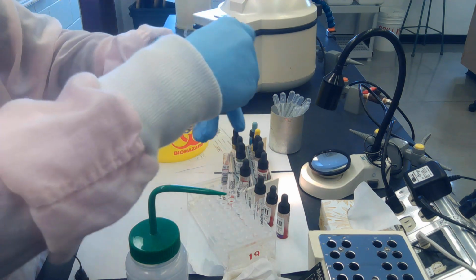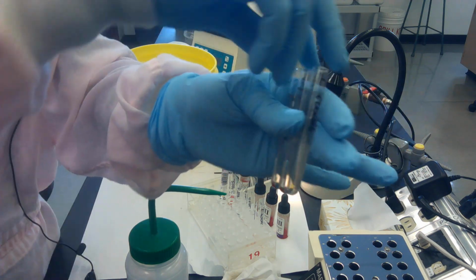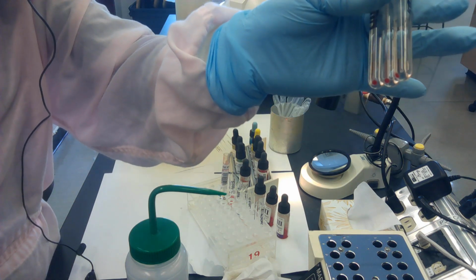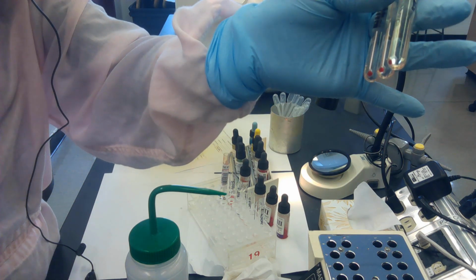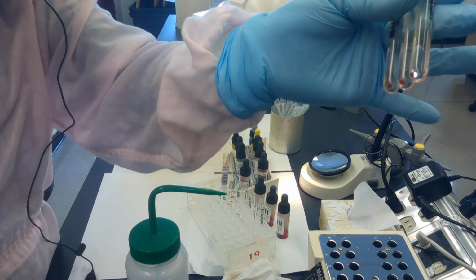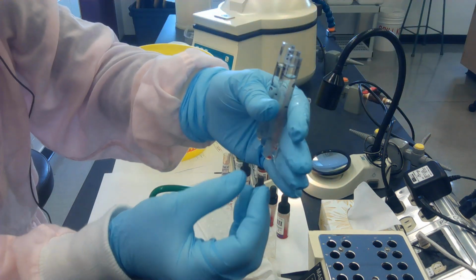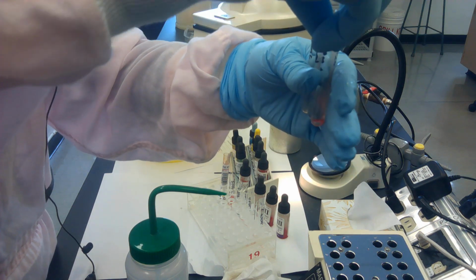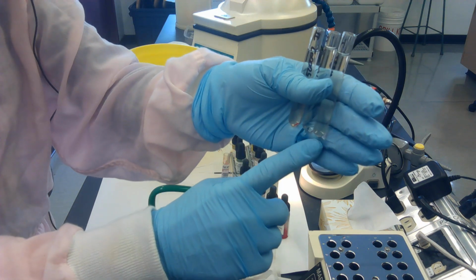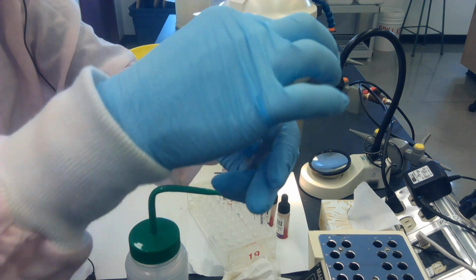And there's my tubes. You can see that the button is off to one side a little bit. It's not directly on the bottom. And that's simply because the head of my centrifuge has an angle to it. So the cells end up on one side. In order to preserve cells and not have them fall out of your tube, it often is thought that if you put the cell button against the palm of your hand, so the button is closer to the palm of my hand, the cells will be retained better.